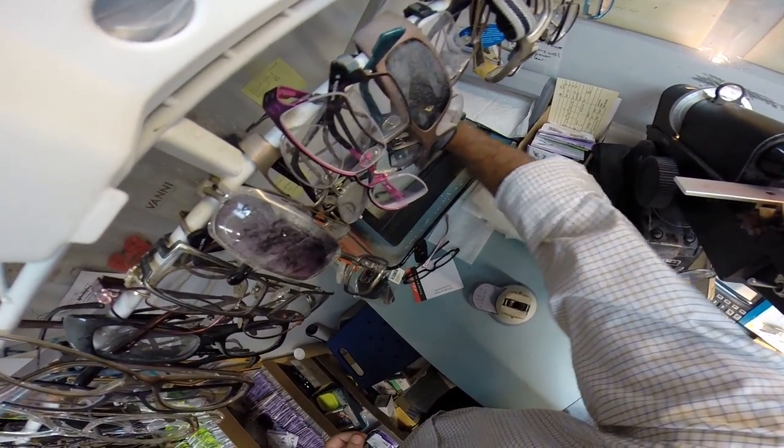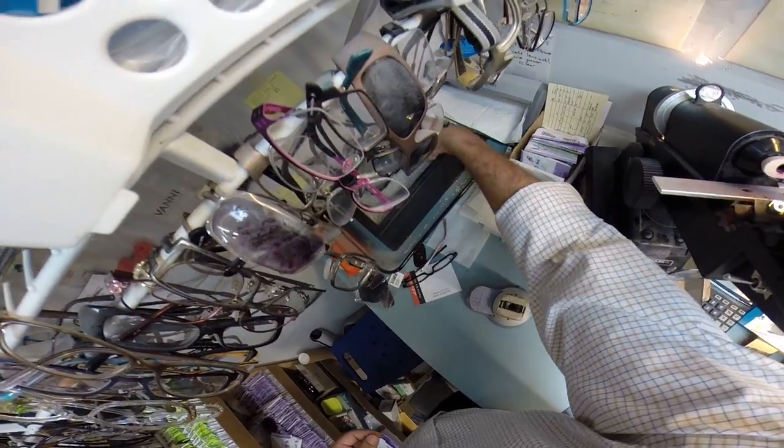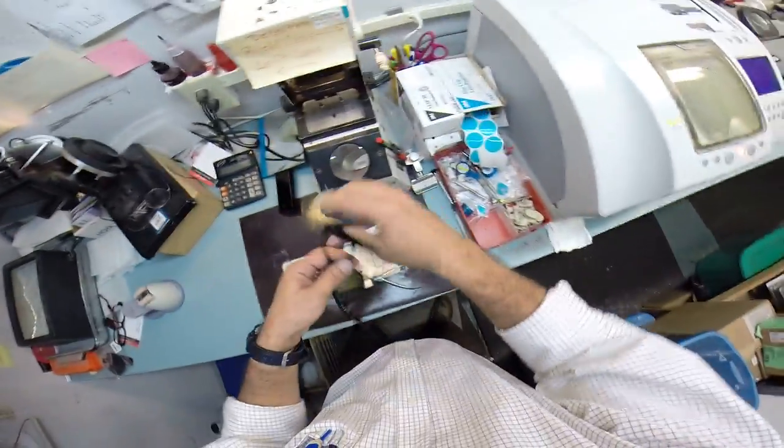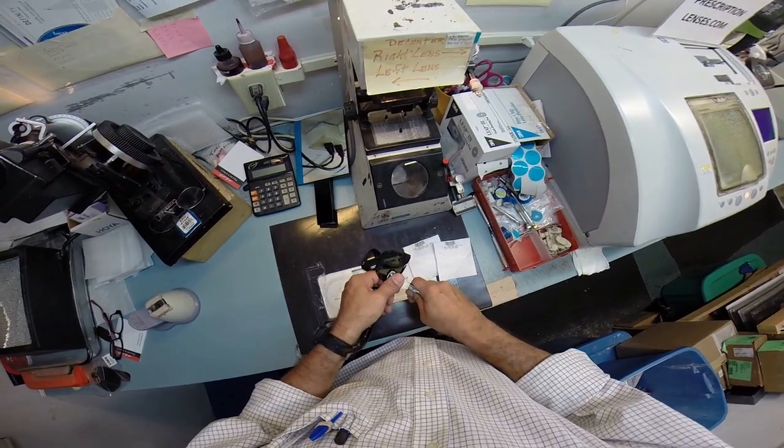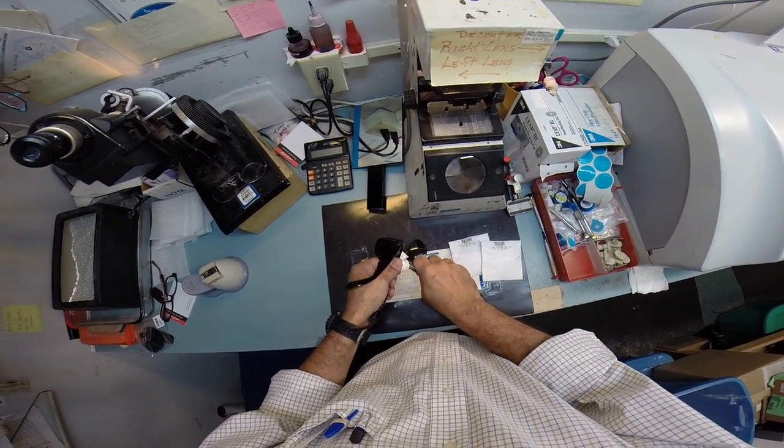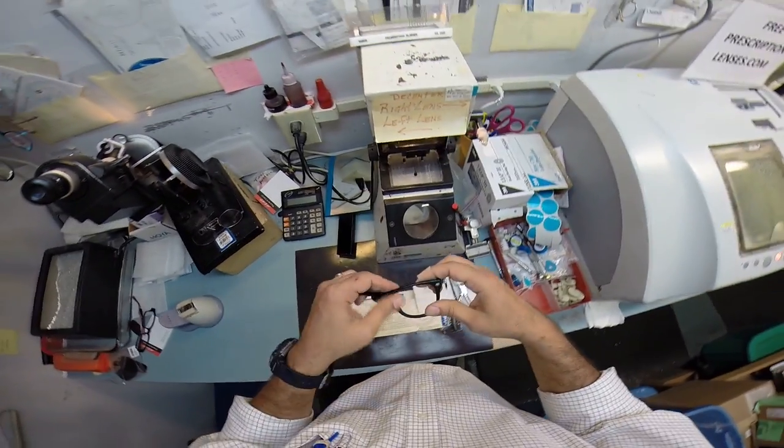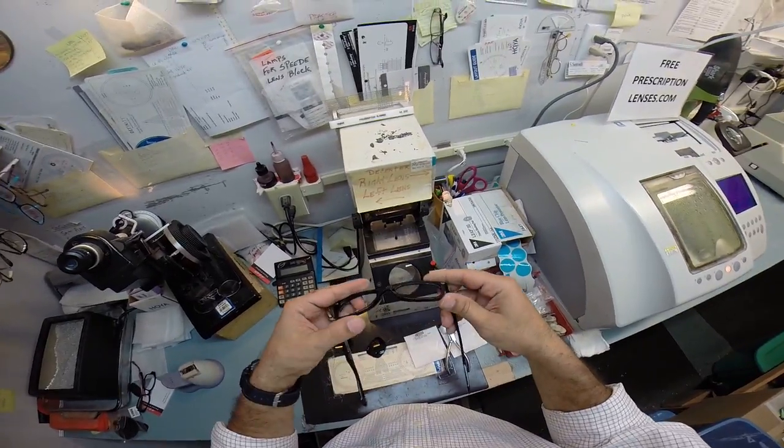Let me do the same thing for this side. Let me put a little bit more heat. The last thing I want to do is break this vintage frame. Alright, let's take this other lens out. And there it goes. Everything is good. We're all good here.